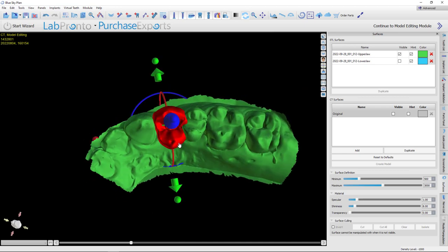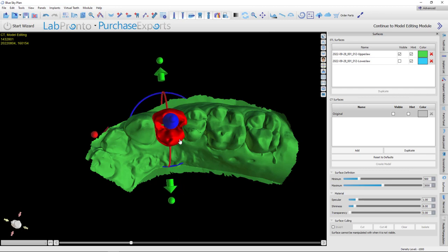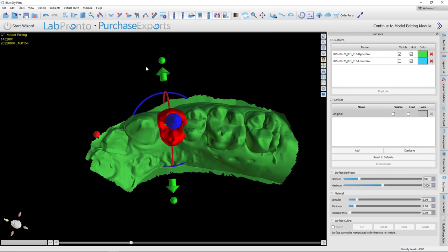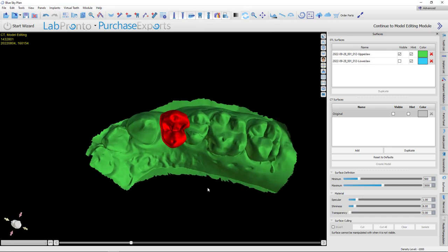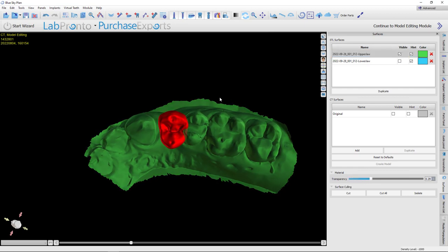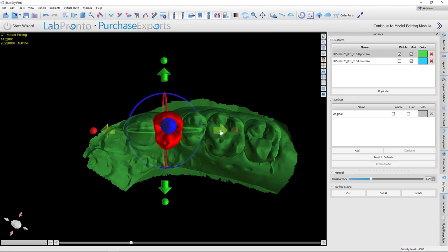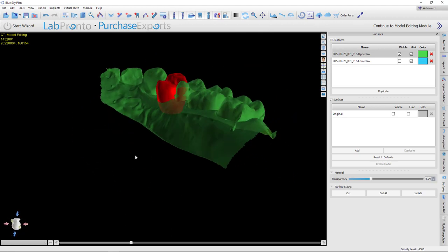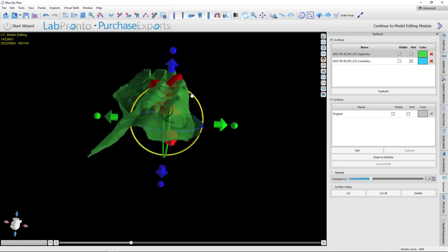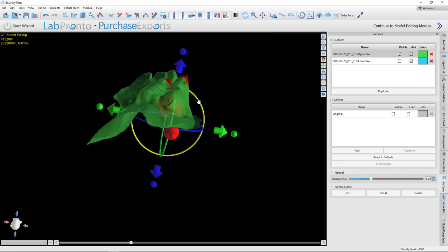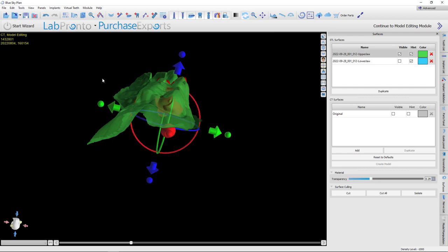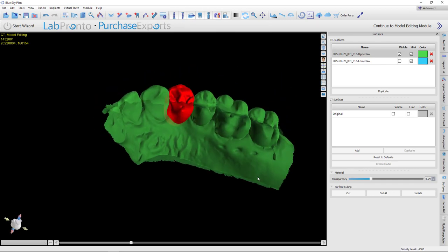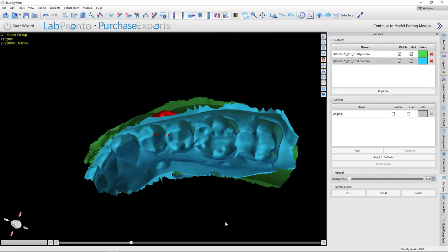OK. That's obviously too big for this. So I'm going to scale it down buccal-lingually. And we're going to make it a little skinnier mesial distally, too. Now, sometimes people can get a little disoriented because your widget can be hidden under this model. One little trick you can do is just select that model and turn the transparency down just a hair. I can still very much see that, but now my widget appears much more easily. OK. And I'm going to try to look at this from various angles and try to somewhat match the adjacent teeth. OK. That looks pretty good. And maybe bring it down so it's not quite so tall.